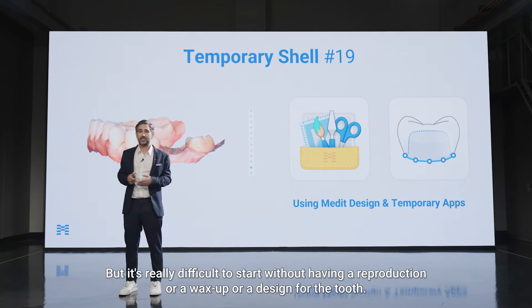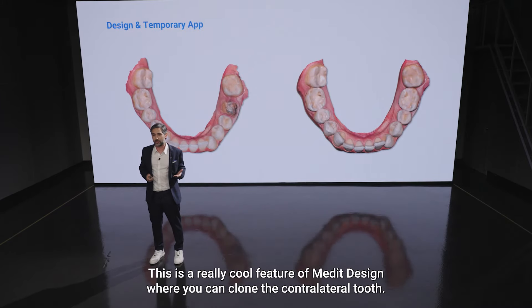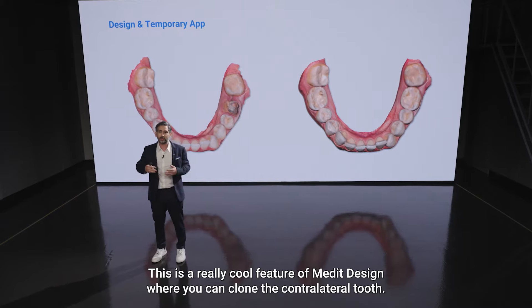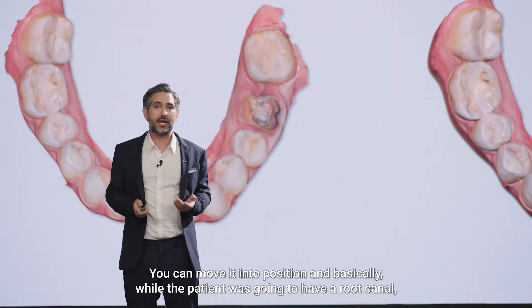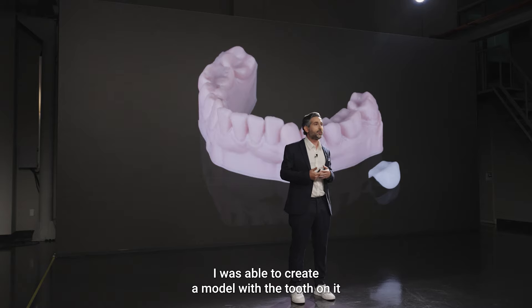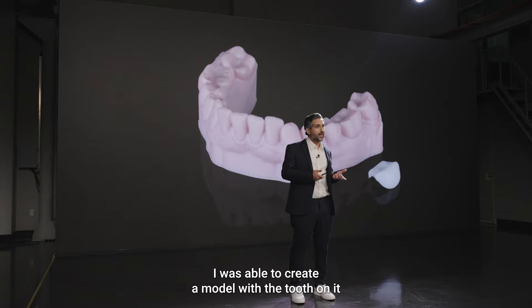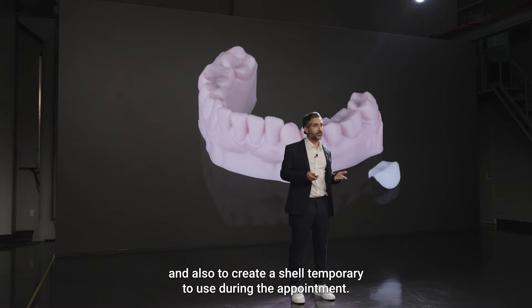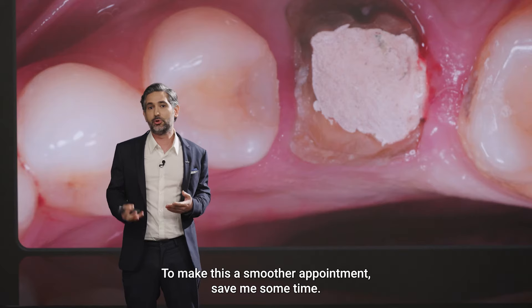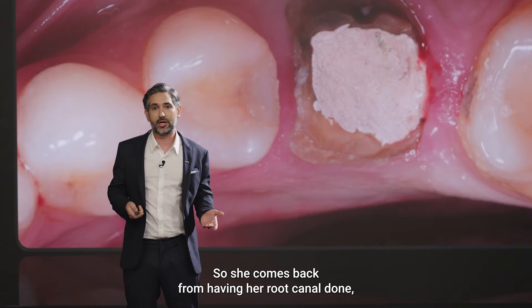What I did is use Medit Design — a really cool feature where you can clone the contralateral tooth, move it into position, and while the patient was going to have a root canal, I was able to create a model with the tooth on it and also create a shell temporary to use during the appointment. This made for a smoother appointment and saved me some time.